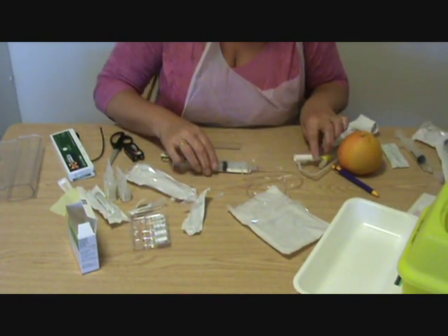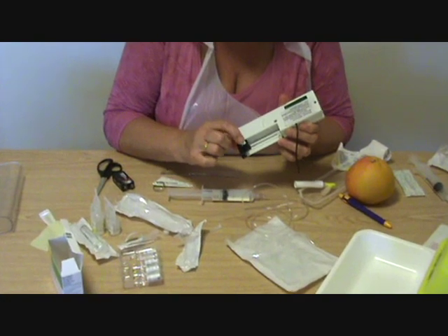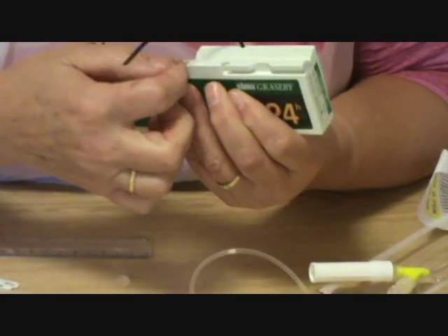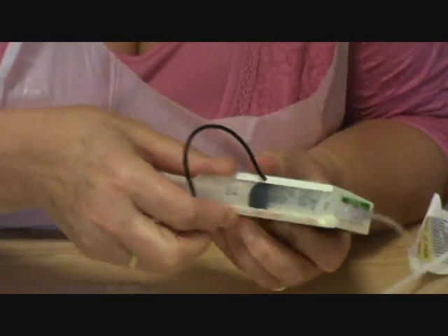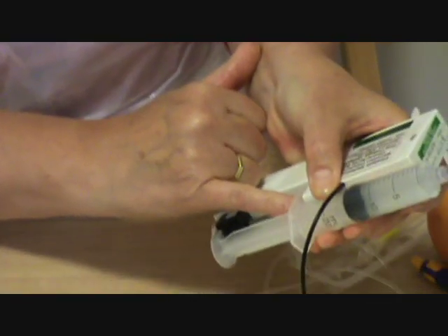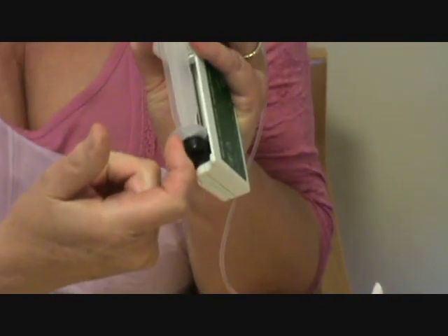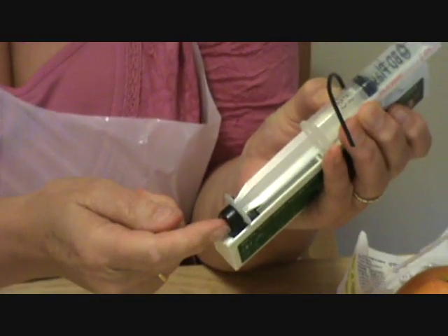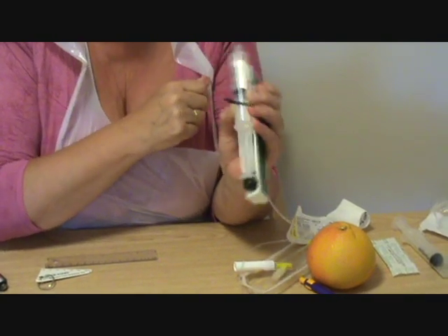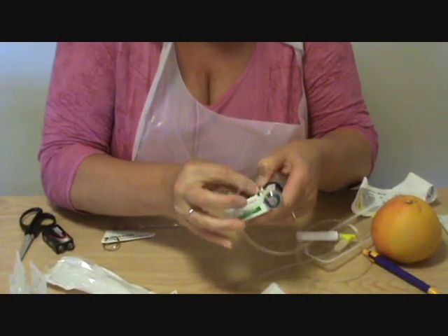I've primed it. I'm going to put the syringe in here. To do that, you pull back and press down on this white part here and pull it back, then you place the syringe in this notch here and in this notch here. You need to move it until the barrel of the syringe is caught in both places, and move it until this hits against this part of the barrel. When you start it, this little part can push the barrel of the syringe through here into the patient. Then you just keep it in place with this little leather retainer.